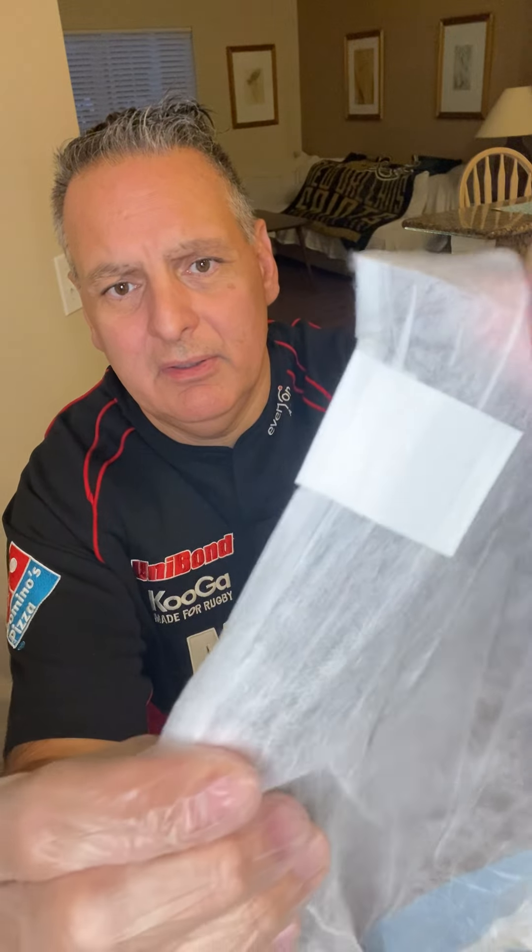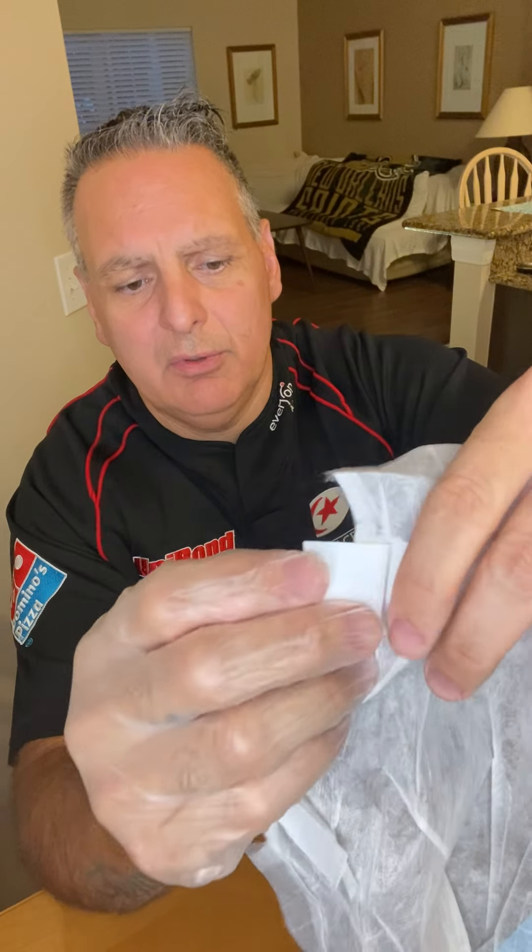So those are the plastic ones. The ones that we moved on to after that, and the ones we're using currently, are the quilted adult briefs — the Wings Choice Plus. The difference is that those are plastic; these are the quilted briefs, almost like a cloth material. And these are the straps — instead of a sticky, these are more like a thin Velcro. Very easy to put on and remove.